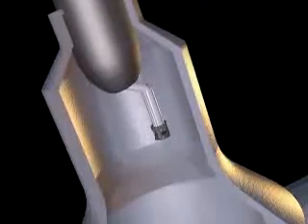The cathode is a filament that releases energy with the introduction of an electrical current, much like that of a light bulb. The cathode energy is released in the form of electrons.